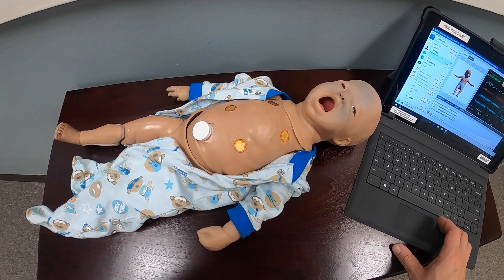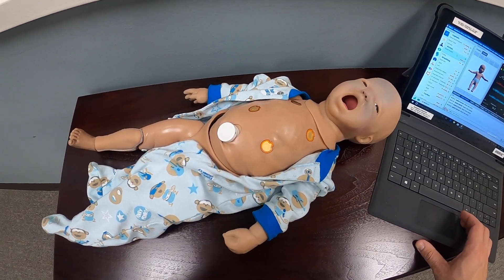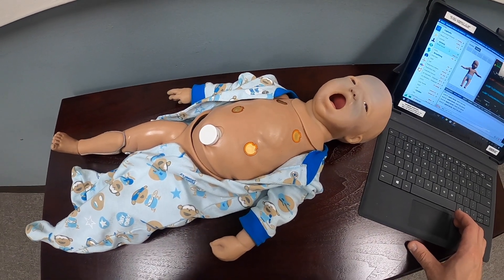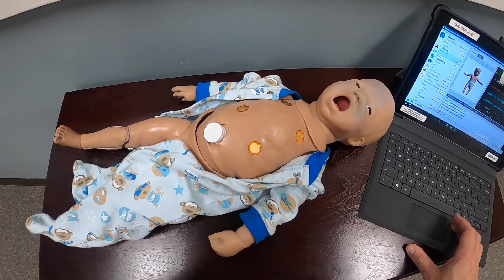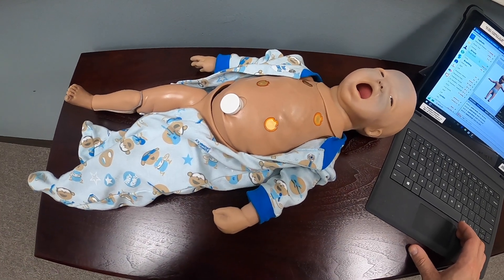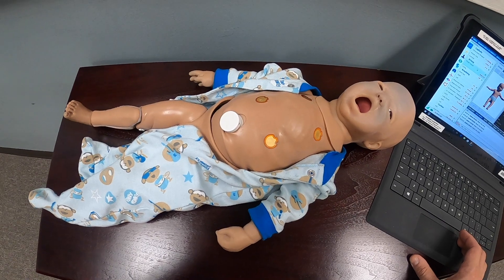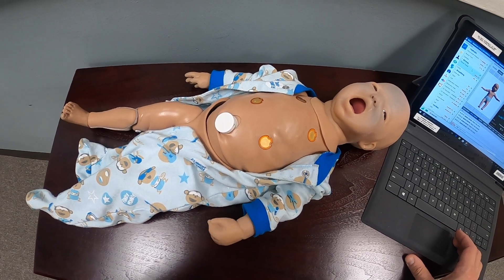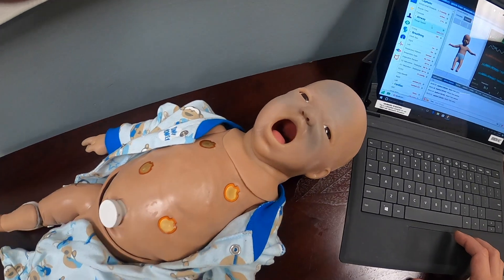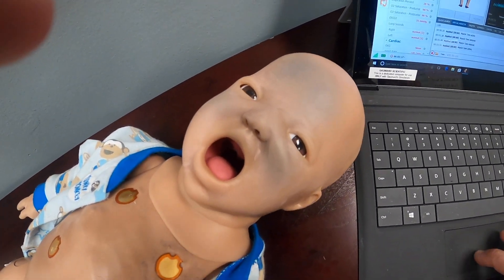Here we have our high fidelity newborn mannequin, used in both the EMT and paramedic programs. We started using this mannequin during their pediatric modules to represent the pediatric assessment triangle. Some of the features it has: it does have active movement in the extremities and can also represent pediatric procedures — this mannequin will actually seize.